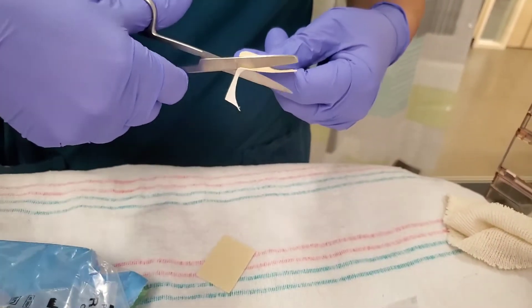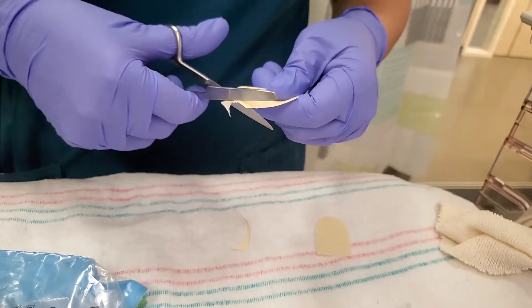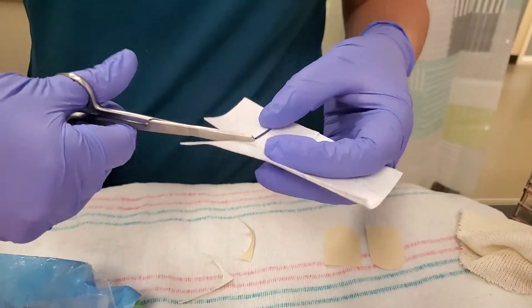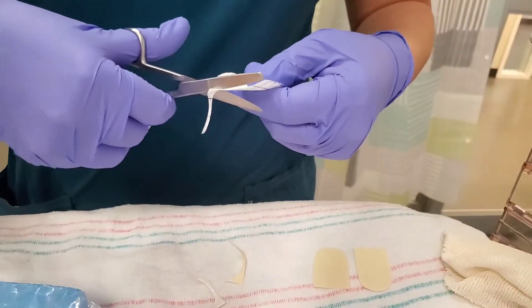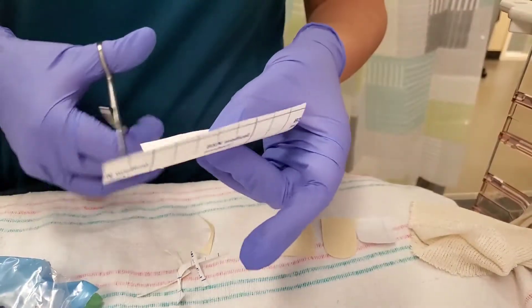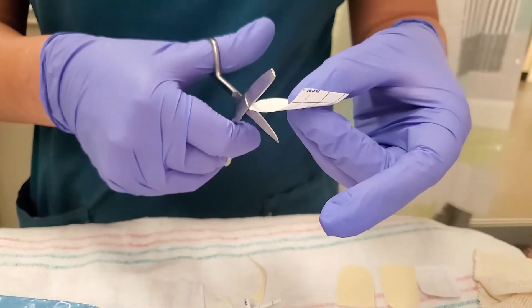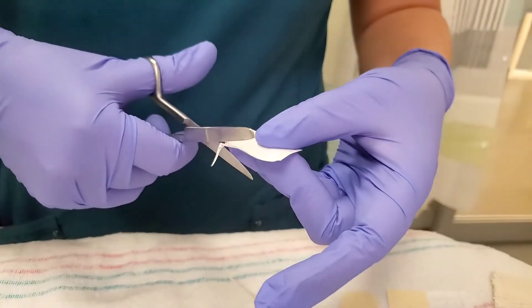So it would really be a custom-made shape and size for each baby. I like to do a rectangle that's curved on one side, with the curved side closer to the nose, which I will demonstrate in just a little bit. You definitely want your white cloth tape to as closely resemble the size and shape of your Duoderm, because it's going to go right on top of the Duoderm. Some people cut the two at the same time. You can always trim it once you actually see the baby and place the tapes on the cheek. That's typically what I do — just adjust as I go along.